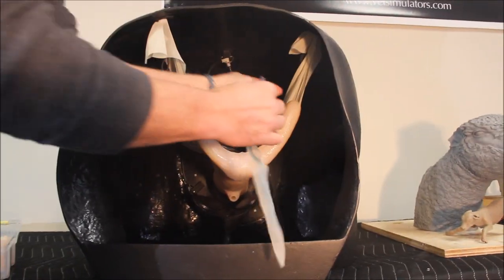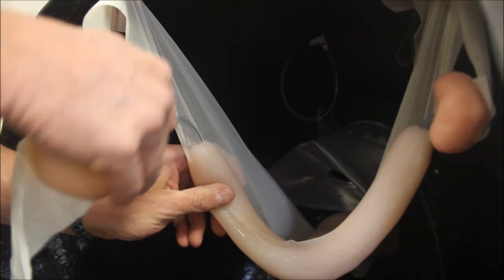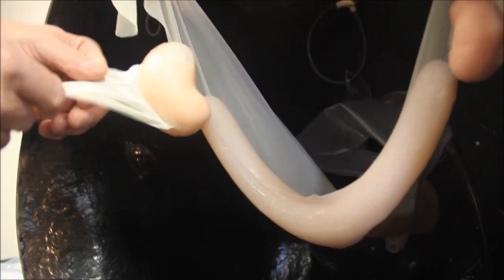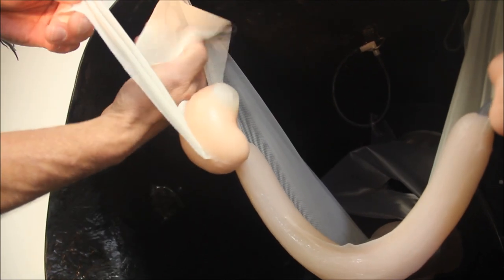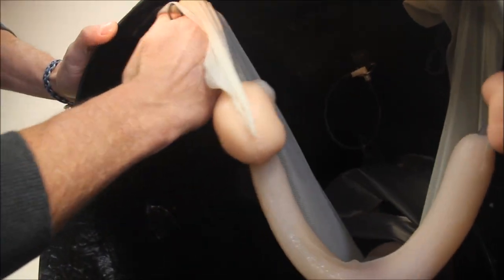There are three different types of ovaries provided: anestrus, estrus, and estrus with follicles. The tubes on each ovary simply insert into the end of the uterine horn until there is approximately one inch or 2.5 centimeters of tube showing. The attached ligament is then tucked behind the magnet.